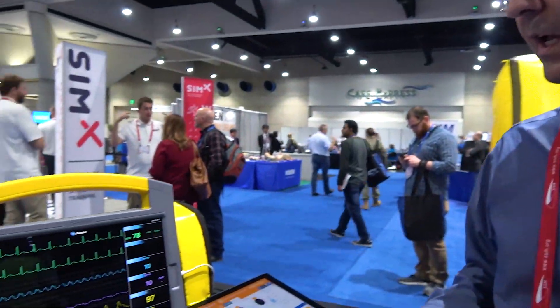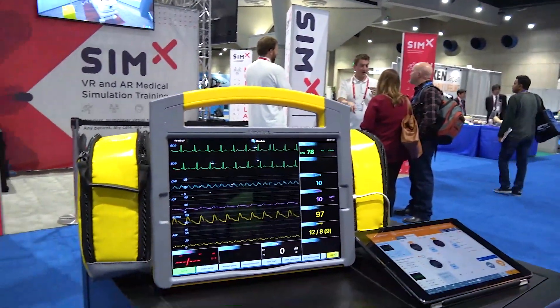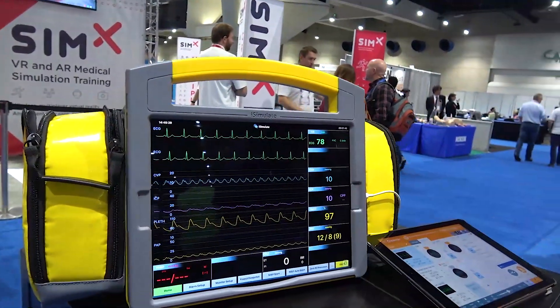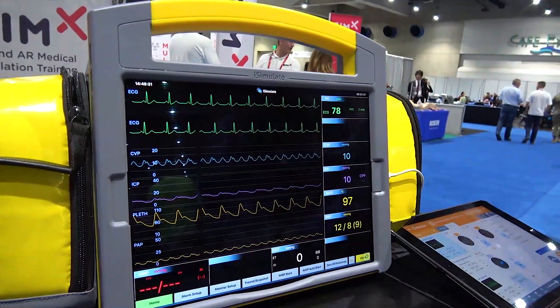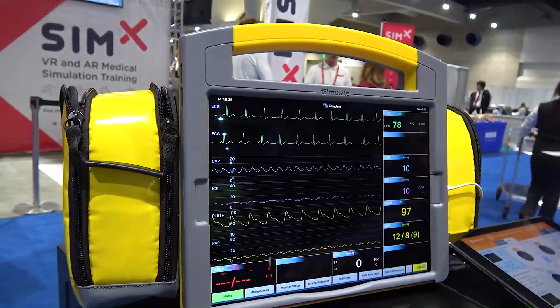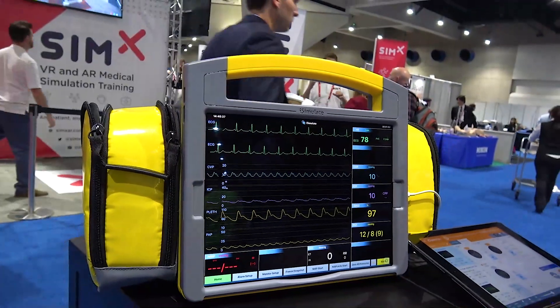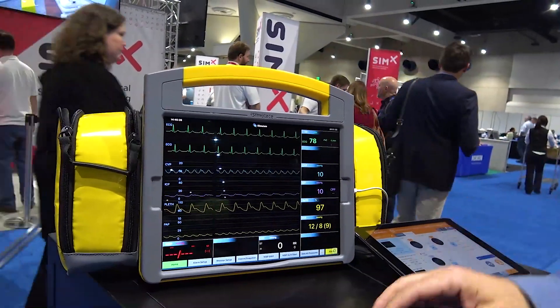One of the main things we have for this year is the critical care waveform. You can see the blue CVP, the purple ICP, and the yellow pulmonary artery pressure waveform. We've now completed everything we need to do for critical care simulation.